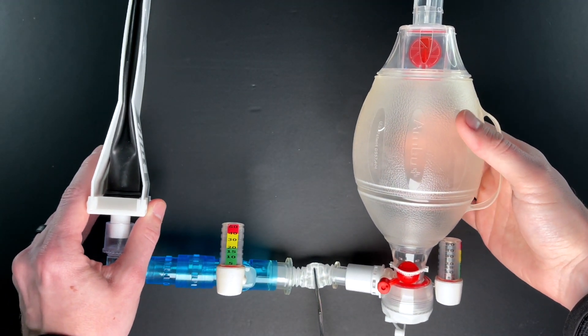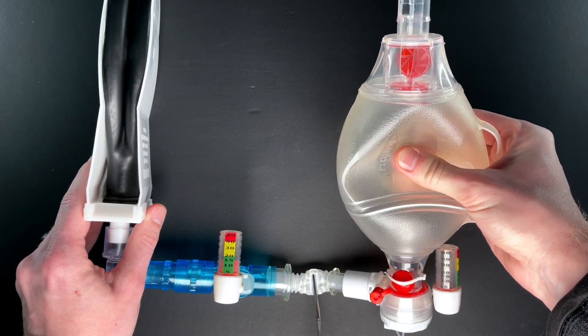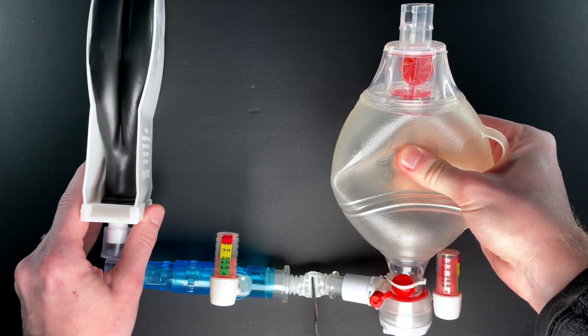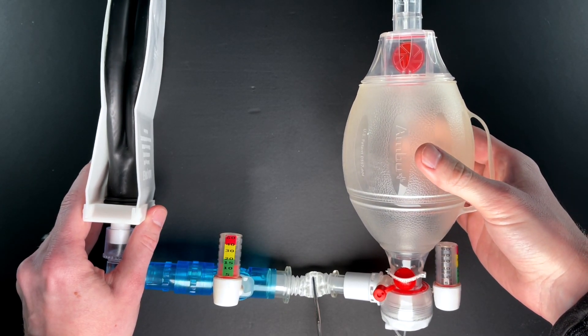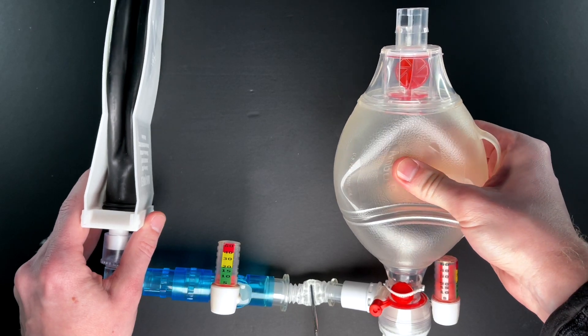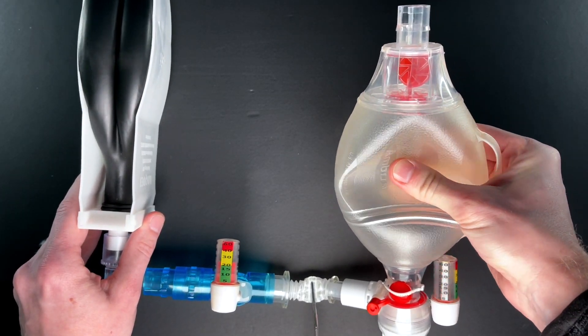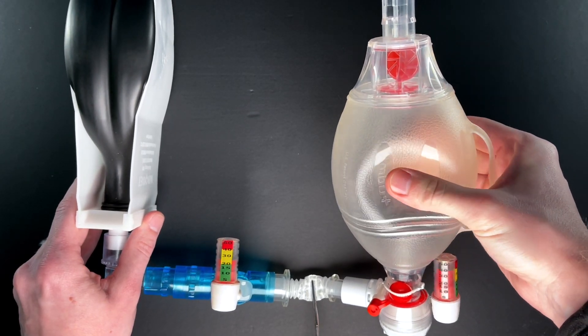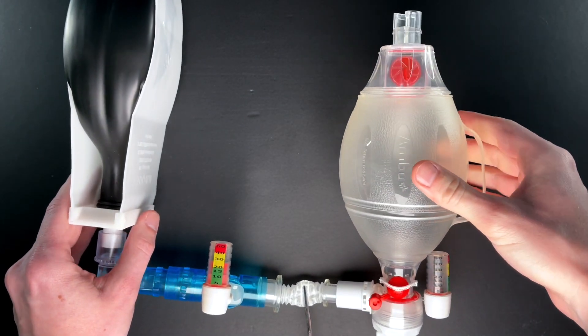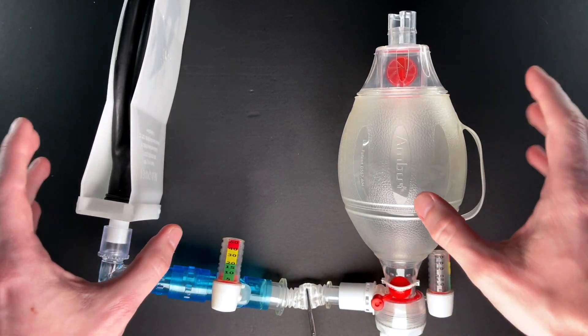The danger can be if I keep bagging this patient and breath stack. I start bagging before they're done exhaling, which depending on the degree of expiratory resistance could be quite a while. You can see I'll really hyperinflate that lung, and this is what a patient's chest could be like waiting for it to exhale. Keeps going, keeps going, keeps going.